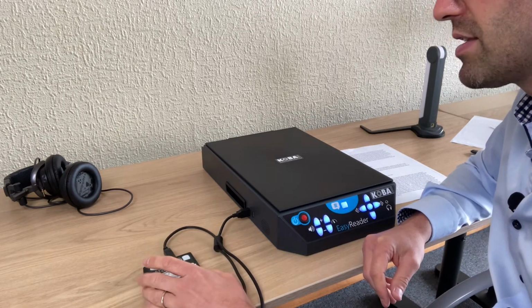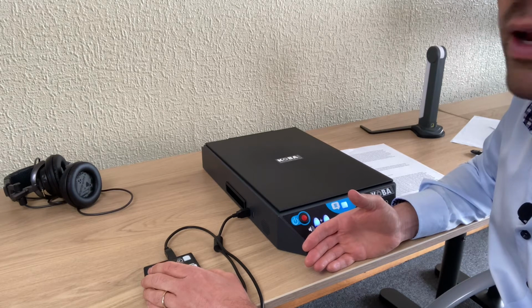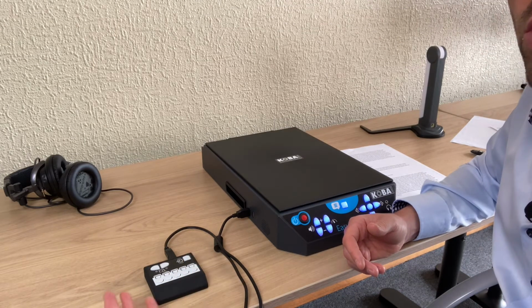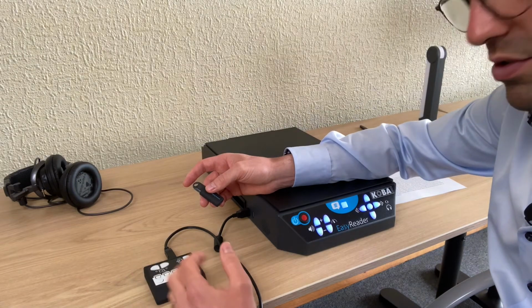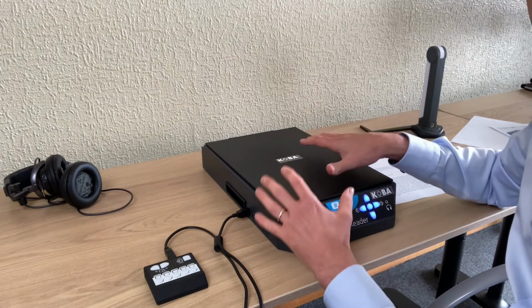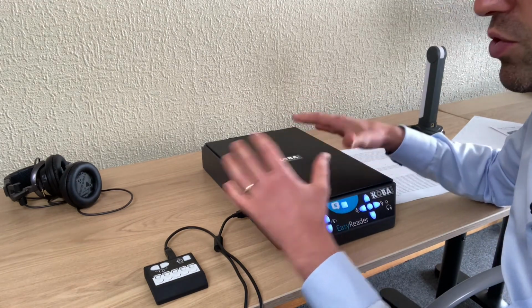With the keypad I can save to the hard disk, to a USB stick, or to an MP3 player. So here, this is a source button. I press the source button. Hard disk. There's only the hard disk. Once I connect a USB stick, for example, then it will also say USB stick or MP3 player. How can I save the memory that's now in the machine? It will always save the memory of the machine to the hard disk.